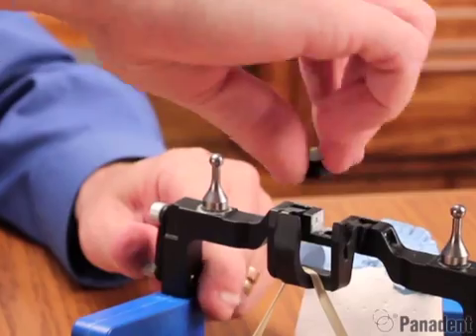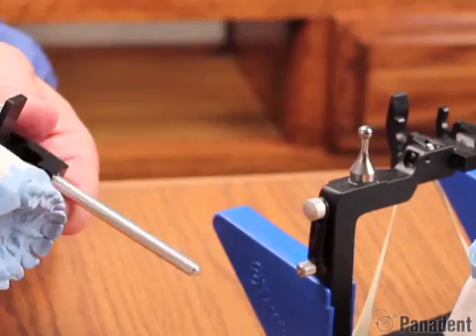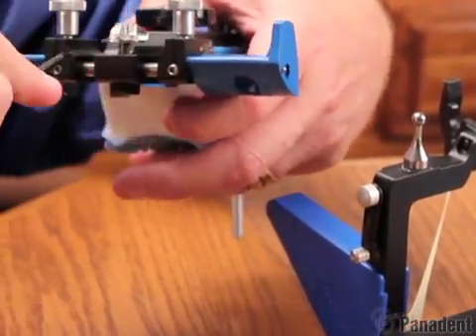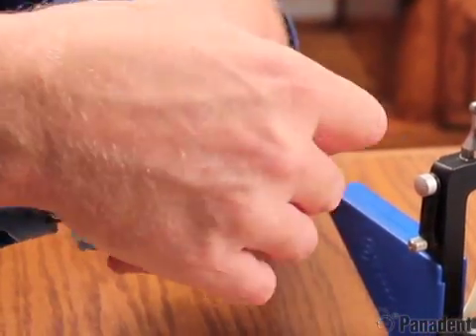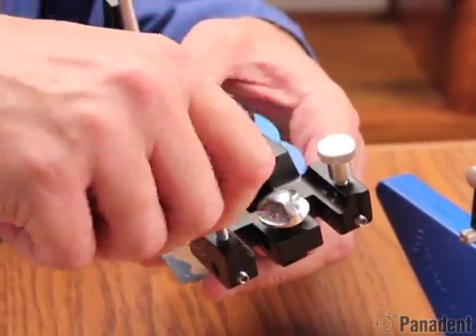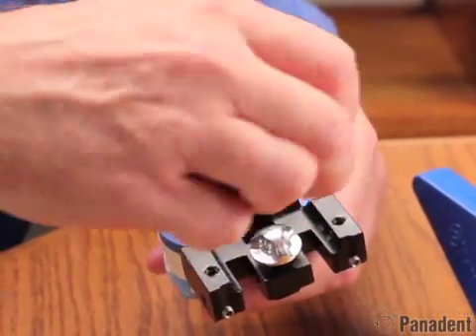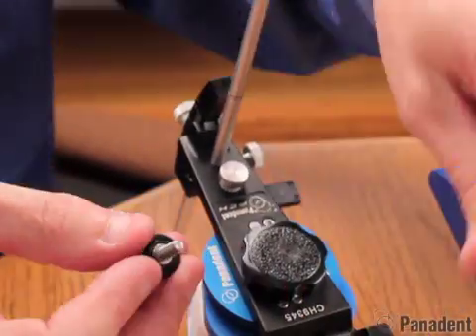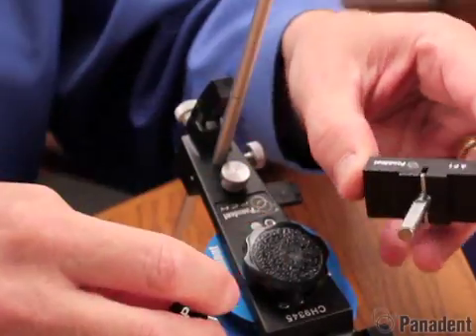We can then remove the brass centric channel and replace that with the horizontal table. With the upper frame, we do want to loosen our set screws in the back with a hex wrench. Then we can loosen the thumb screws on top to remove our motion analogs. We also want to remove the analog thumb screws because we're going to replace those with the API screws, which have a machined end that's very flat and indexes to the flat on the shaft to orientate the graph support in the proper location.